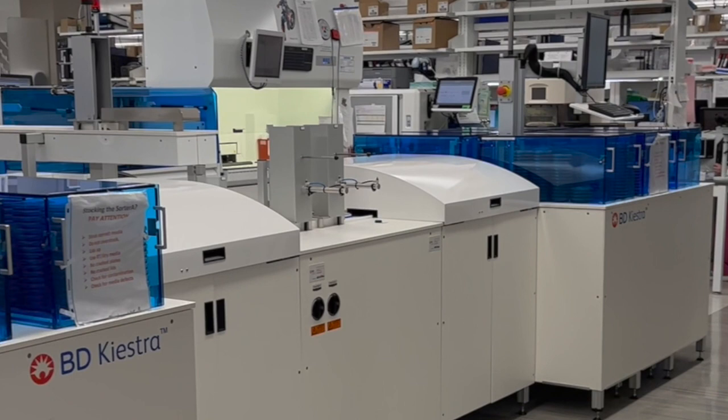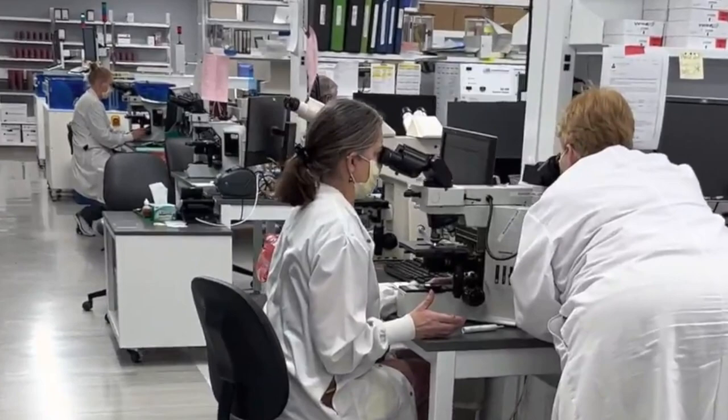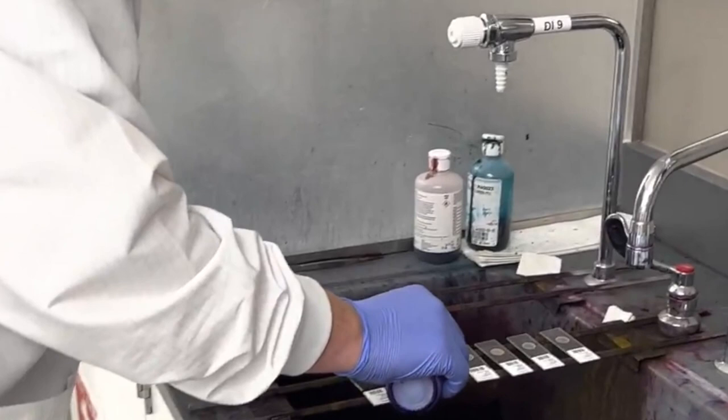This lab tour video will highlight diagnostic testing that is performed in a clinical microbiology laboratory. Clinical microbiology laboratories play an important role in patient care by detecting, isolating, and identifying microorganisms that cause infections. The field of clinical microbiology is multifaceted and multidisciplinary.